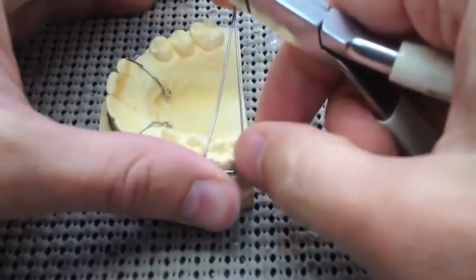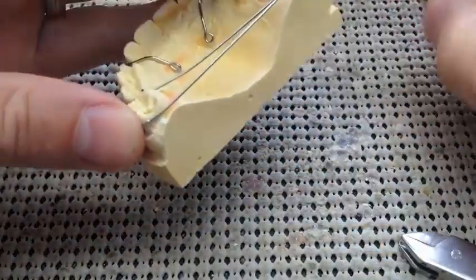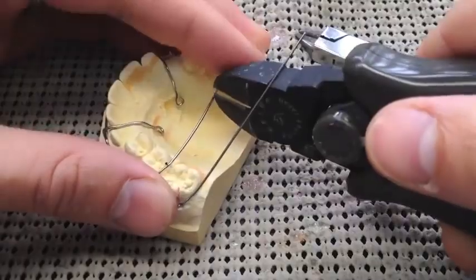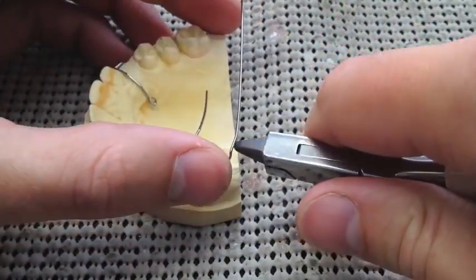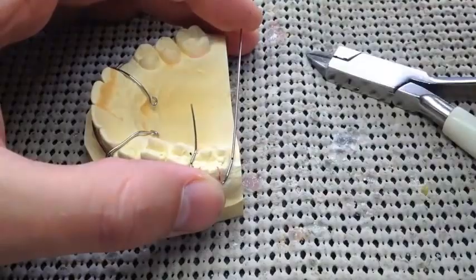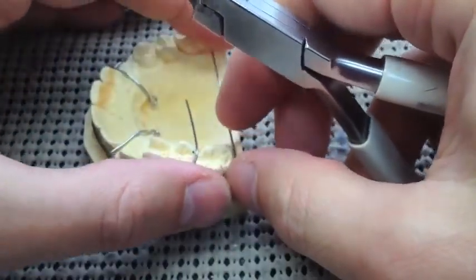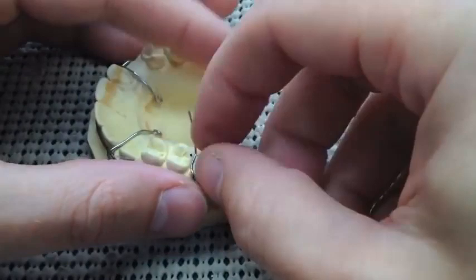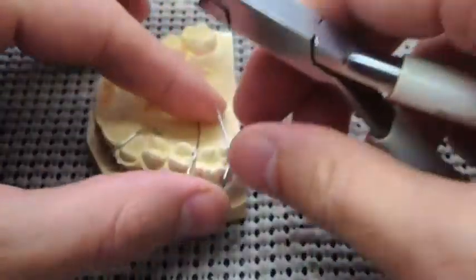From here on out, sometimes it's a good idea to work one leg all the way to the finish and then work the other leg — start with the mesial and then work on the distal. That way it's easier to set the wire back in the same place every time. But me, I go back and forth. This is where it comes in good to know how long to make your wires. I used to have marks on my bench where I'd do a standard 3 to 4 inches — you won't have to cut off as much, waste less wire, and it makes it a little faster. I'll cut these twice, so that's just more time.